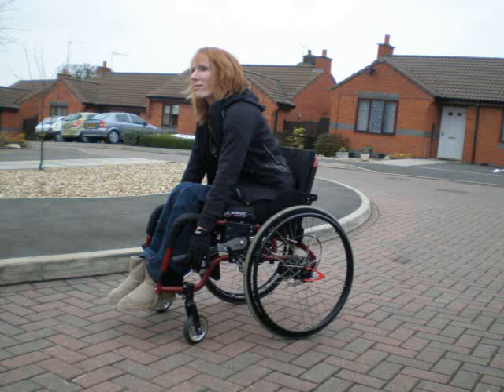Conventional wheelchairs are powered, braked and steered at the hand rim. Powering at the hand rim creates a natural lunging forward motion. This causes problems of breathing, back, digestion, compression of internal organs and also balance.